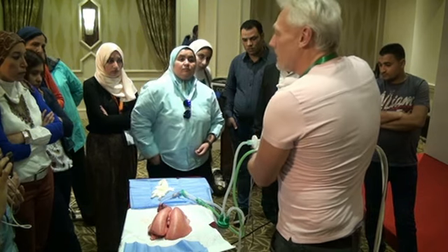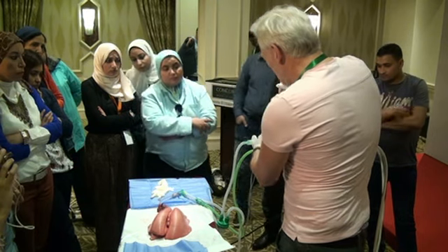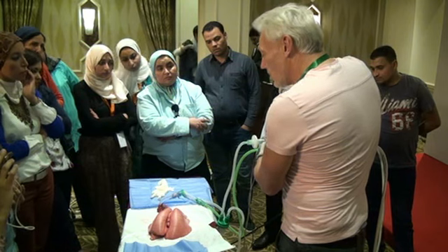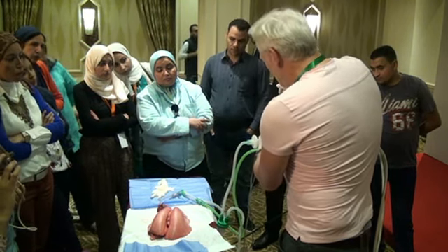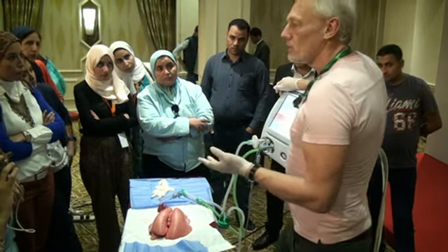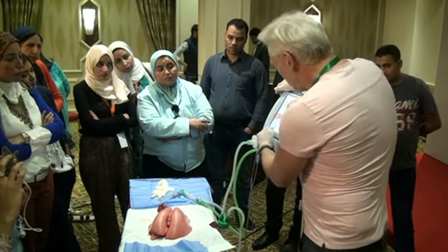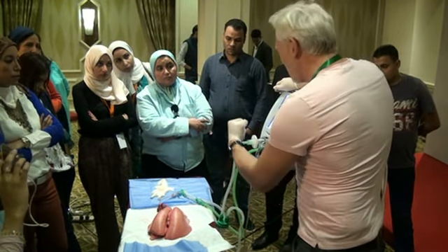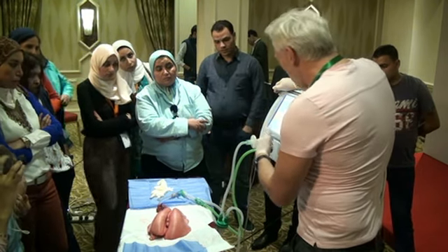I've dialed in 28, but actually this machine can't give it at the moment, simply because it's starting from such a low PEEP that it's unable to generate that pressure because there's so much lung to fill. So the difference between the 28 and the 0 that I've dialed in is 28 centimetres. What pressure do we call that? Yes, the difference between the two is the driving pressure. So that's how we're driving our lung, 28 over 0. That is not very efficient.